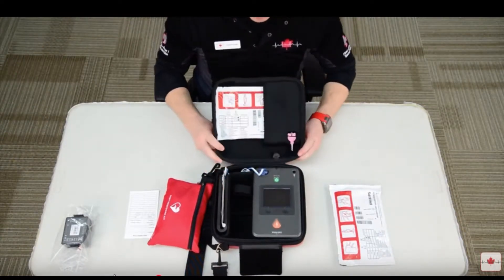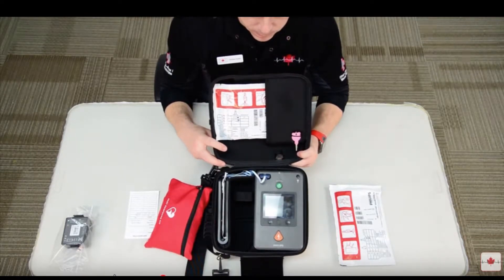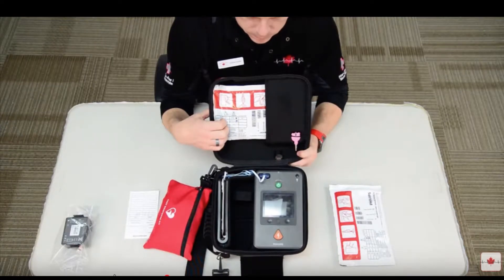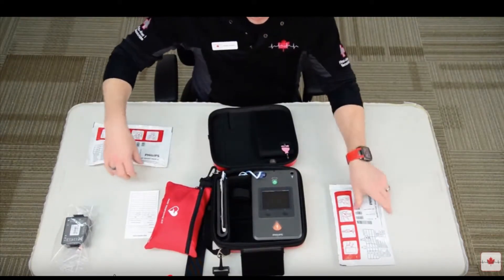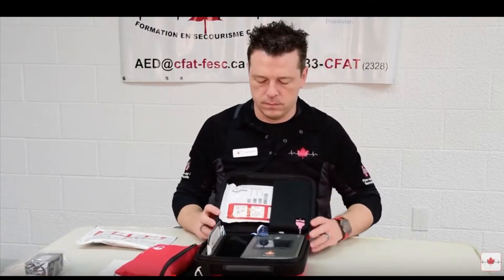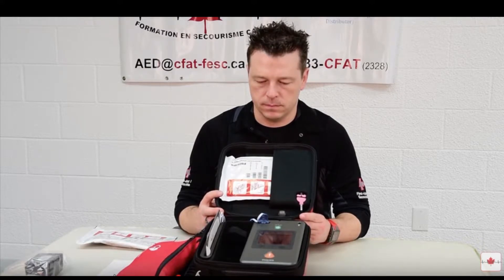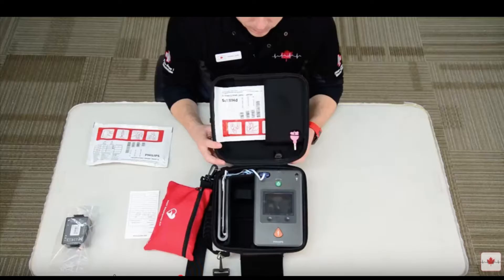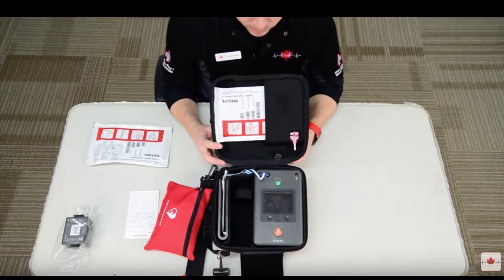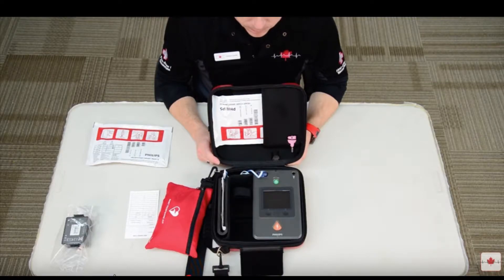Since it's considered best practice to have two sets of electrode pads for your AED, in the red carry case you will notice a second spare set of electrode pads in the lid. If you have them, take these out and put in the new set that was sent to you. If we've sent you the second set of pads, please rest assured that we have the expiry dates for the electrode pads in our automated tracking system.